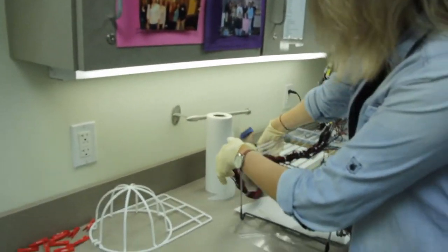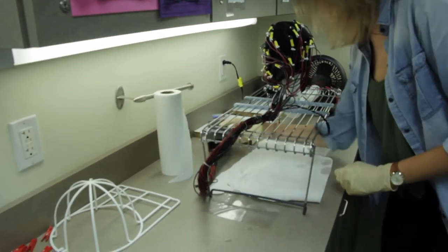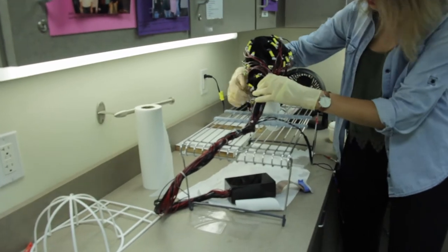Unclip the cap and coil the wires underneath the rack away from the cap so that the water does not drip on the wires.